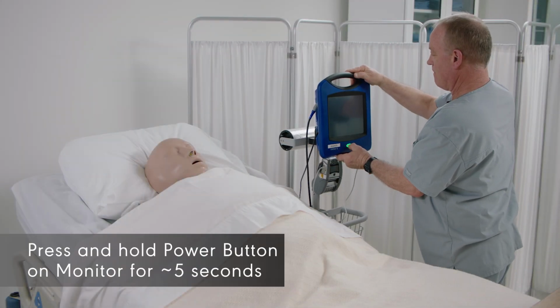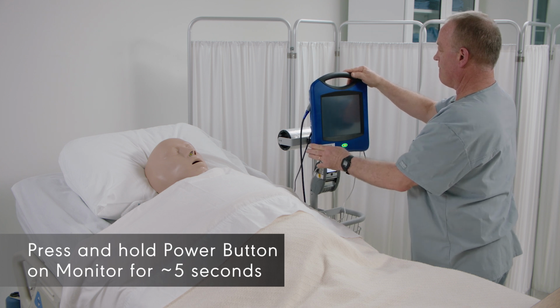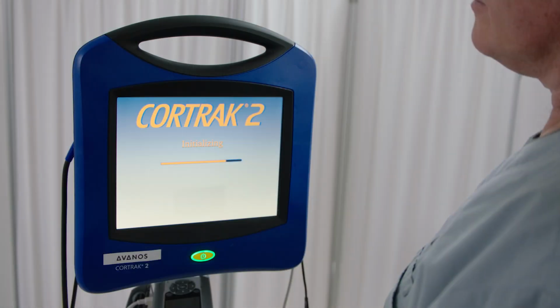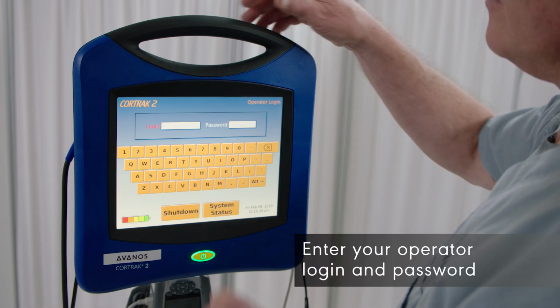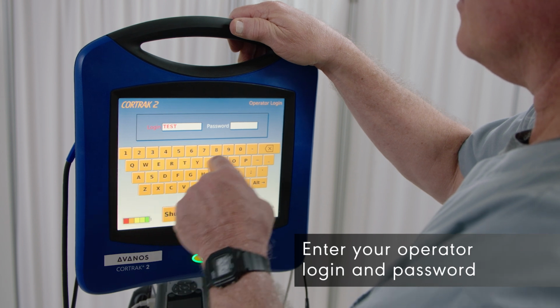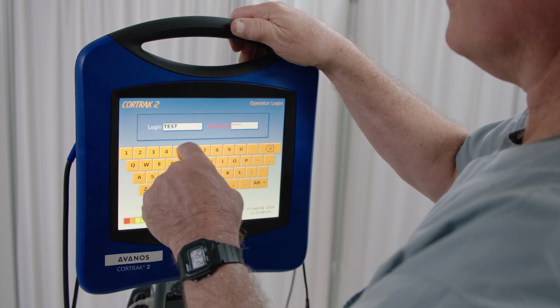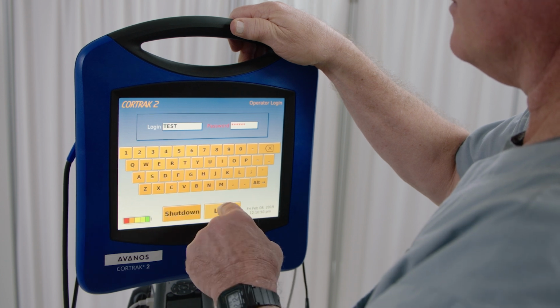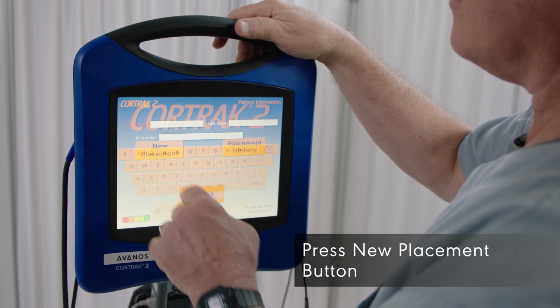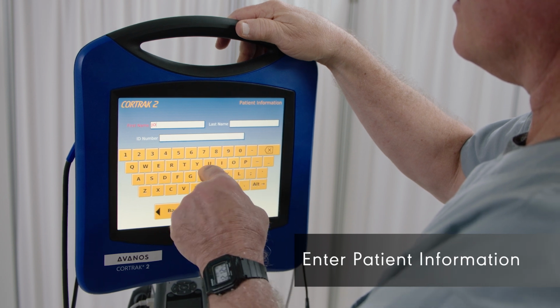Press and hold the power button on the monitor for about 5 seconds. Enter your operator login and password. Press the New Placement button. Enter patient information.